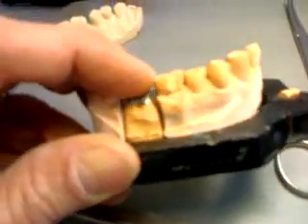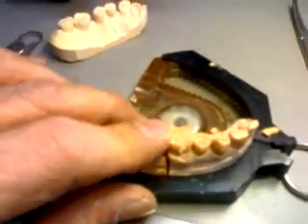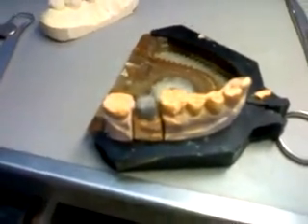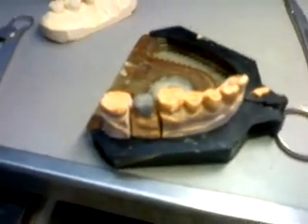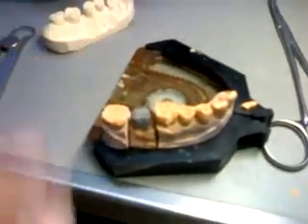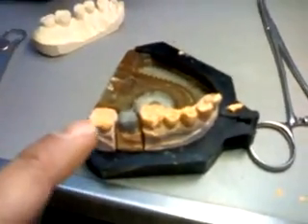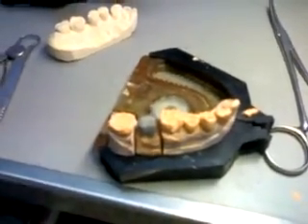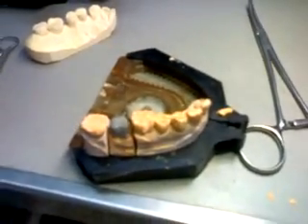Unless you want to repair it by doing some soldering, but in these cases I do not like to solder holes — unless it is a laser solder, and we have seen on another published video how well laser soldering can work. But I am not sure it is good enough once you put porcelain on it. I would rather have a framework which has no holes — hole-less — with no holes in it at all.